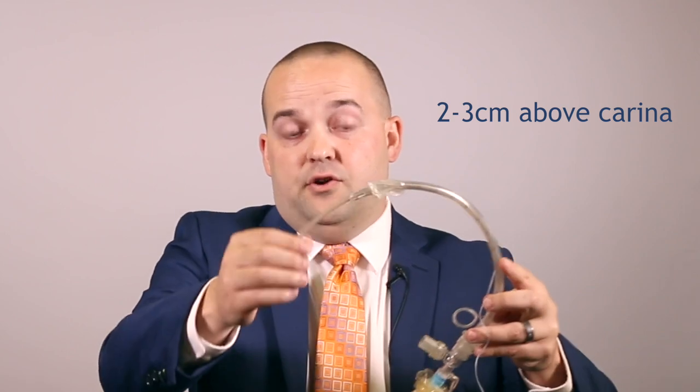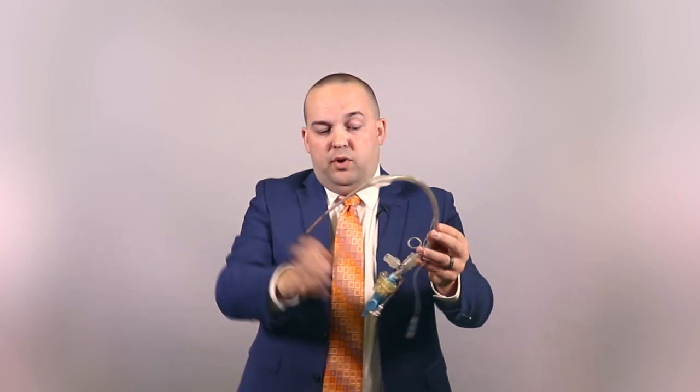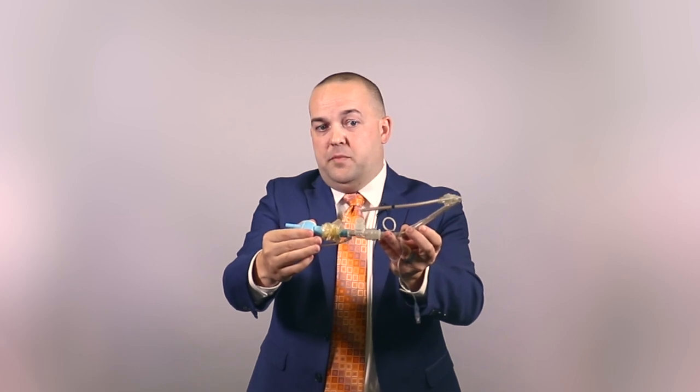When endotracheal tubes are positioned correctly, they should be two to three centimeters above the level of the carina. As you can see, this catheter is significantly longer than that. If you insert it all the way, it will either go down into the right main stem bronchus, or it will bump into the carina and curl over on itself, potentially tying itself in a knot. Then when you apply suction pressure by depressing the button, it will adhere to the wall of the trachea, and when you remove it, it will tear that tissue away, causing bleeding.